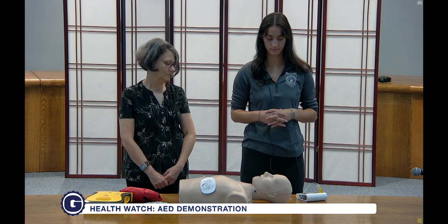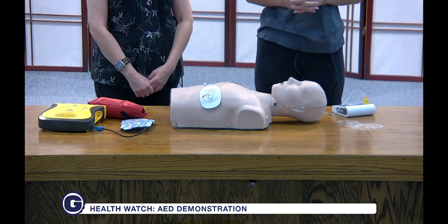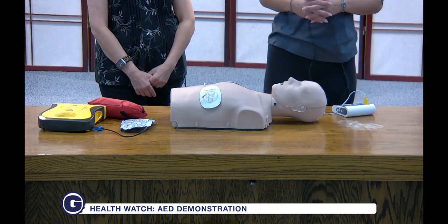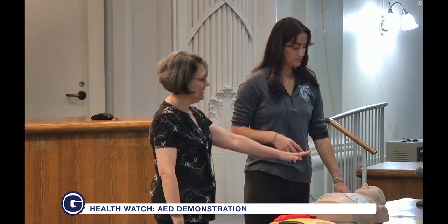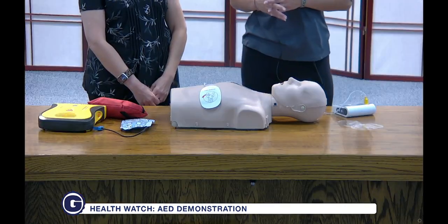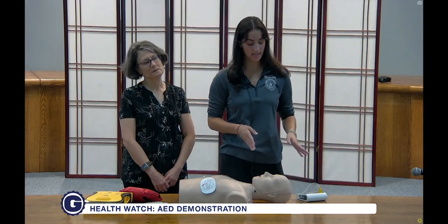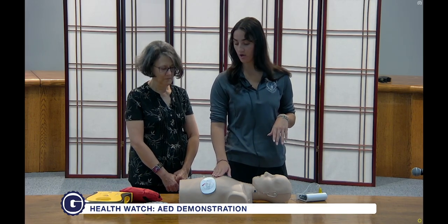Charging. Stay clear of patient — everybody stay clear. Deliver shock now. Press the orange button. Now. Shock delivered. Begin CPR. And I can do CPR even with this on the body? Absolutely. The AED is going to tell you to continue CPR and then tell you when to stop again in case another shock is administered. When the shock is not charging, you're able to touch these wires and resume your CPR as normal.